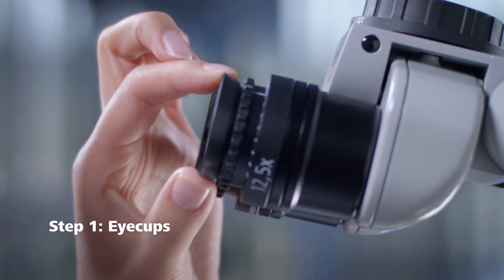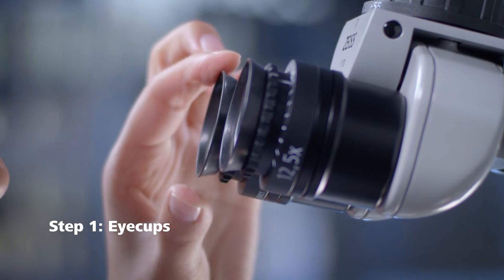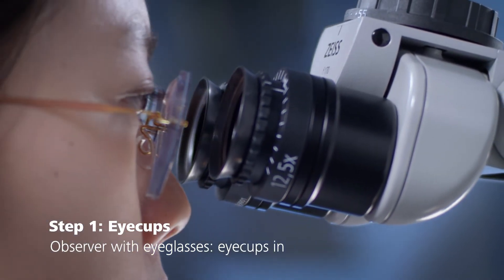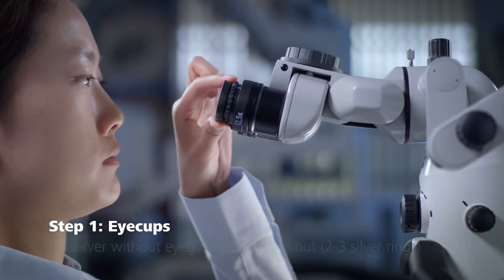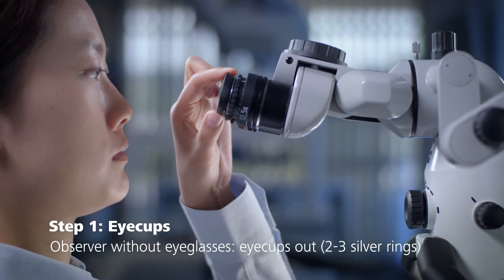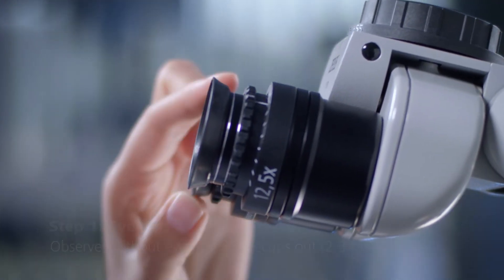To achieve parfocality, adjust the eye cups so that the entire field of view can be seen and no black borders are visible. If you are wearing eyeglasses, the eye cups must be screwed all the way in so that no silver rings are visible. If you are not wearing eyeglasses, unscrew the eye cups; for most observers, two to three silver rings will be visible.